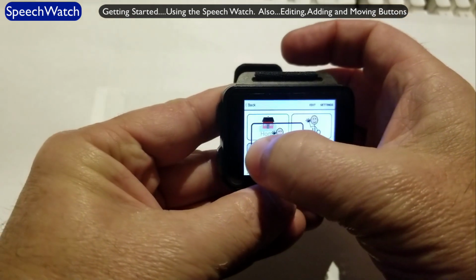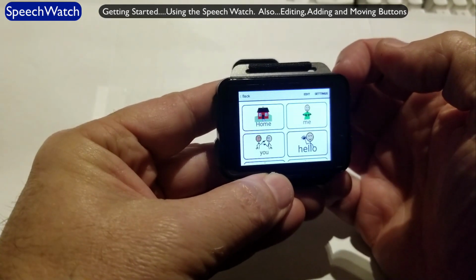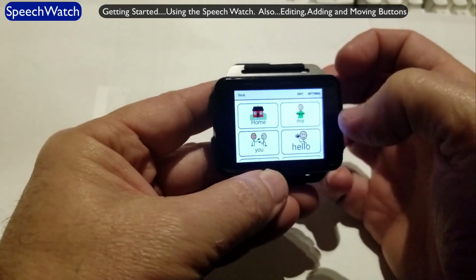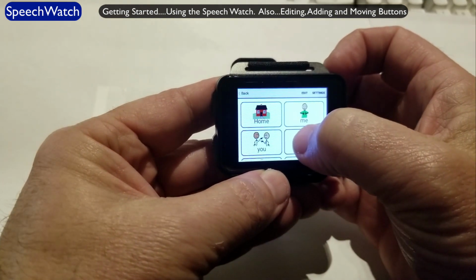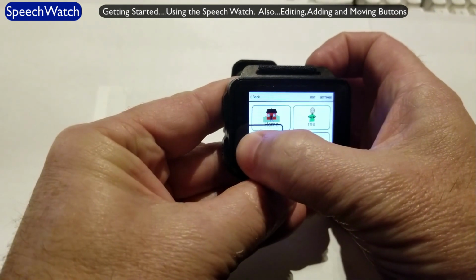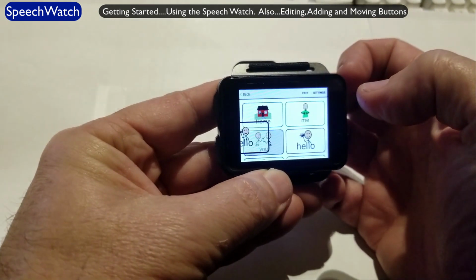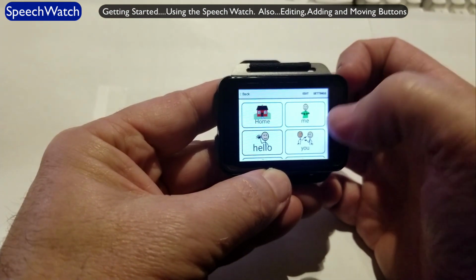And then slide over just to the left of the button where you want it to go. And now it just a little bit. And it'll just move it right over. I'll bring it back over again here. Press and hold, come across. There you have it.